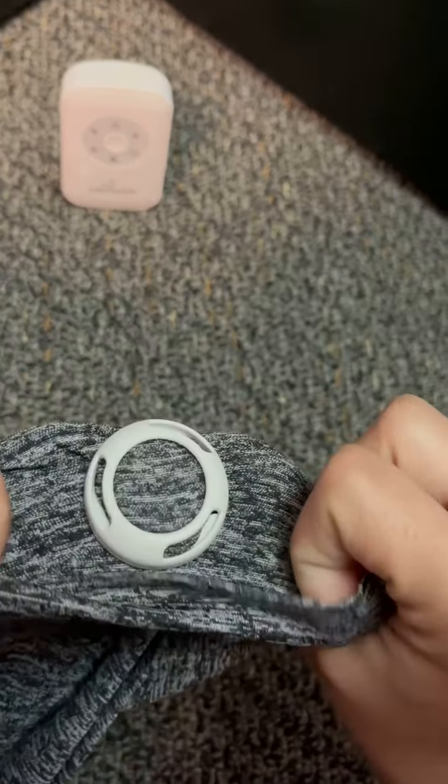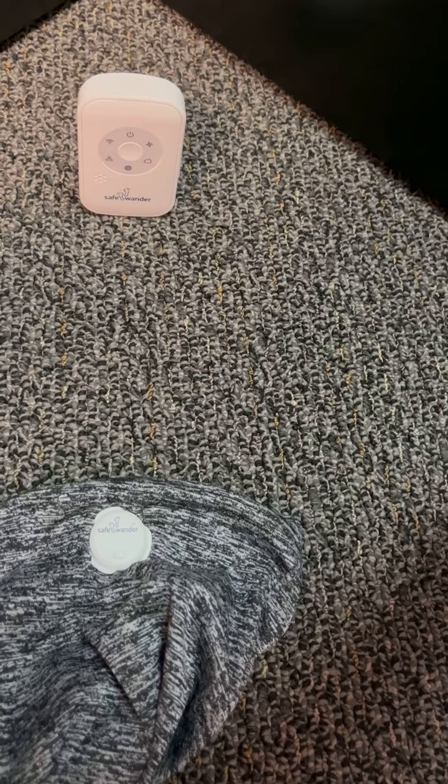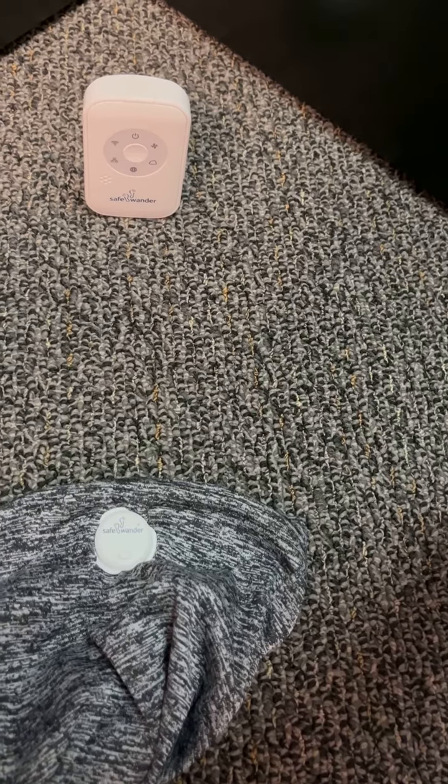The recommended sensor locations are in a tight fitted t-shirt, preferably in the front pocket parallel with the shoulder, or in undergarments. The sensor will detect angle change from lying down to sitting up and then send an alert onto your phone.